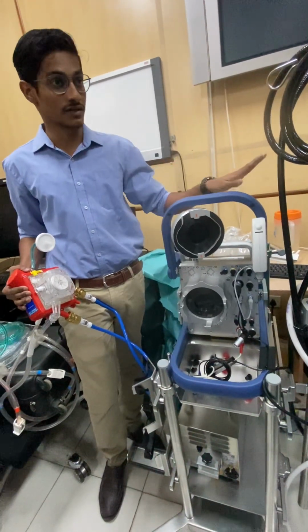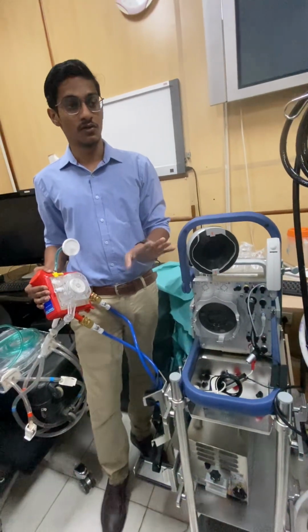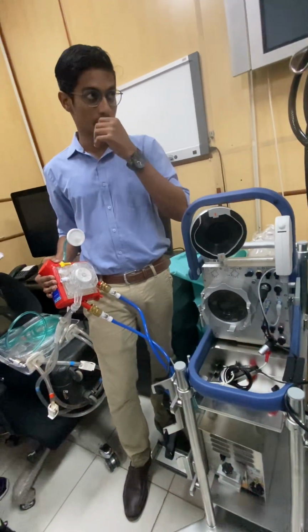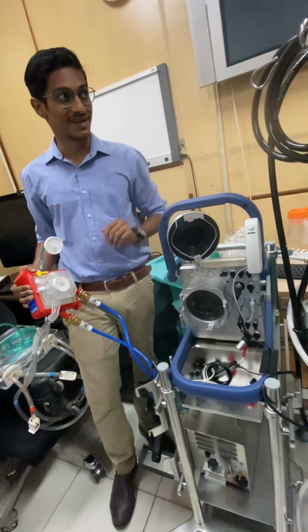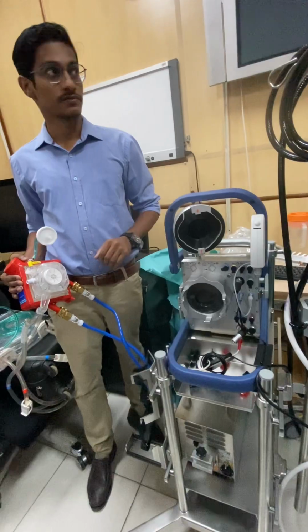Just water, no electrolytes or anything. Tap water can be used, RO if possible. No electrolytes, nothing should be there. This is a good question: sterile water or distilled water we can use. Yes, distilled water we can use.